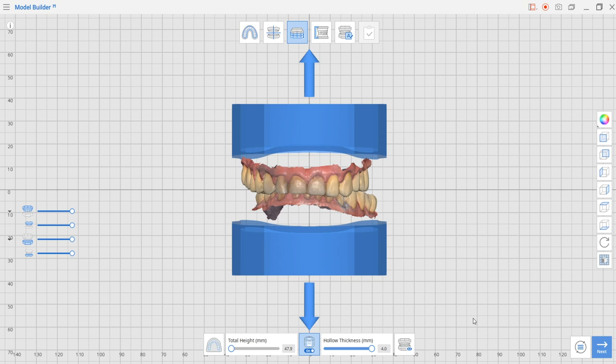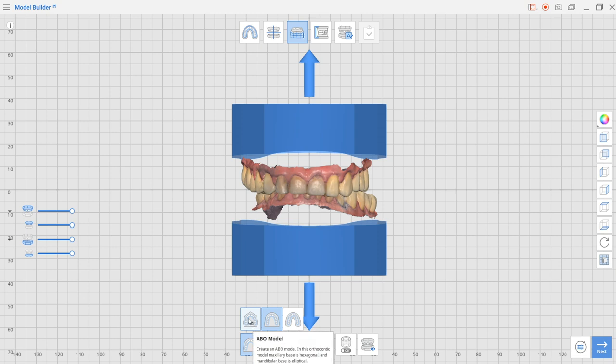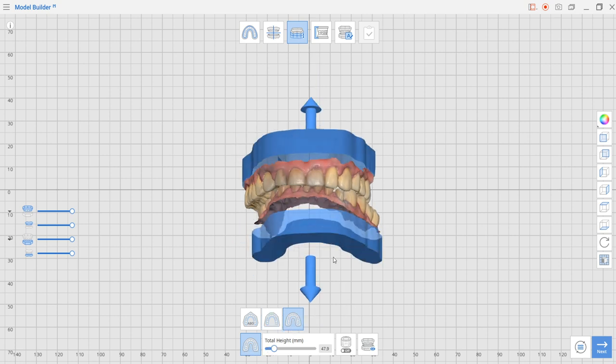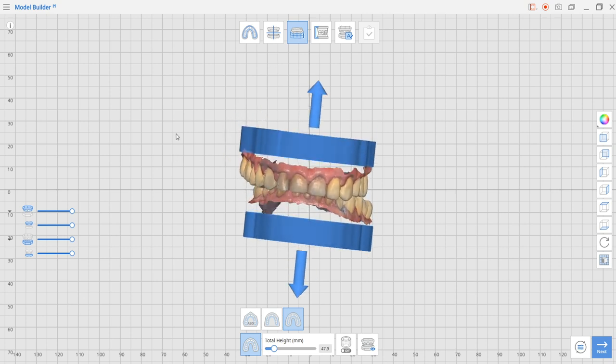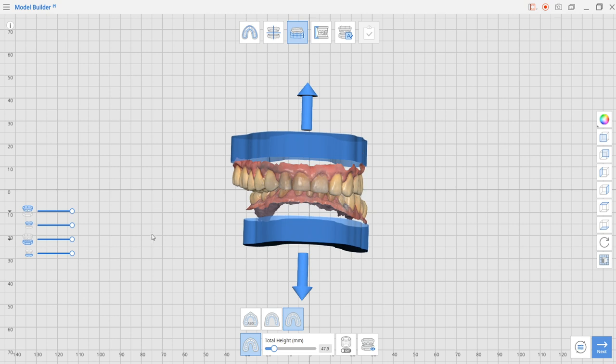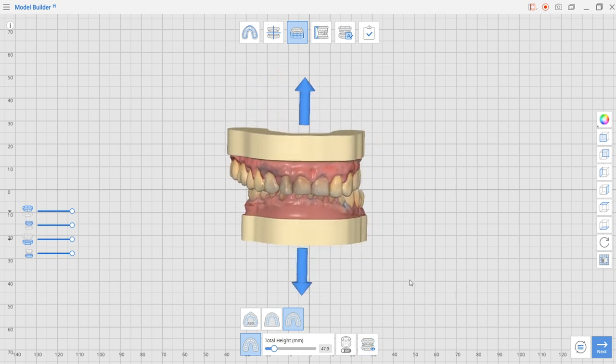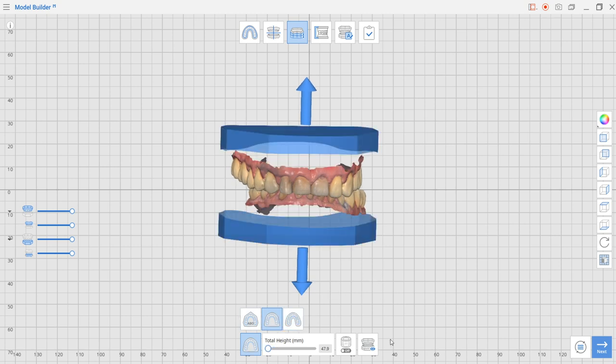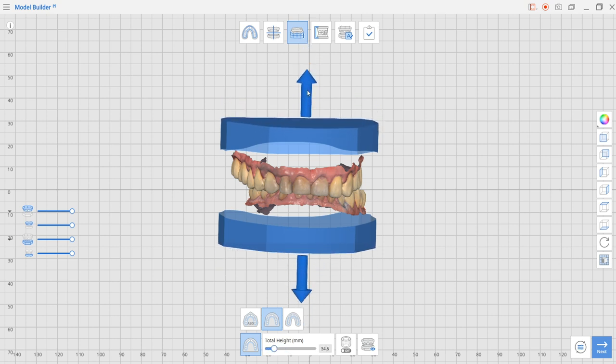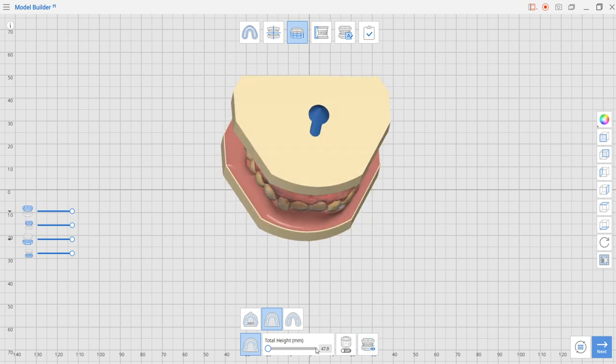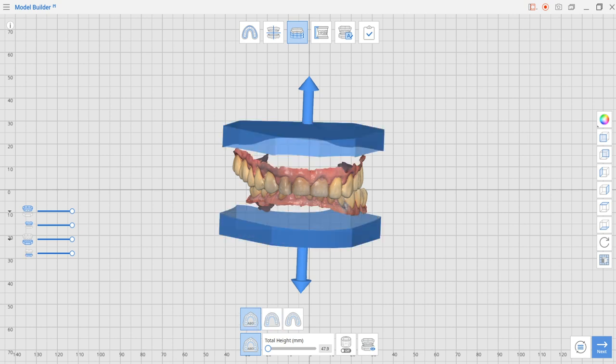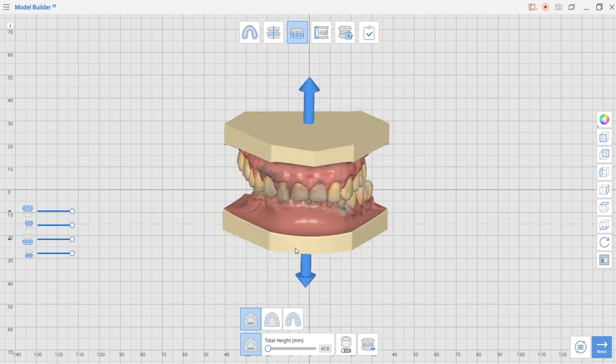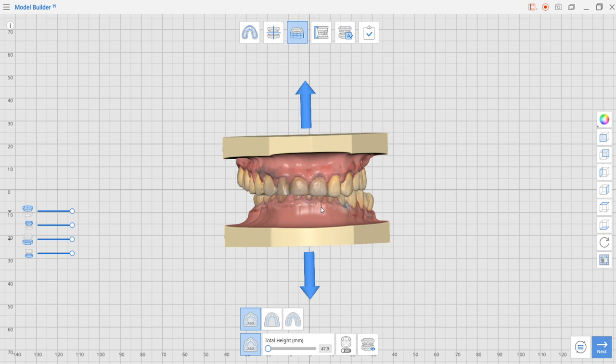In this next step we'll select the dimension of the bases for the models and the shape of these bases. We have three possibilities for shapes: orthodontic models, a plate model, and the plateless model. Plateless model just follows the form of the maxilla and the mandibular. We can pre-visualize how it looks. Let's go to the plate model and generate it. You can extend or reduce the height by dragging the arrows.